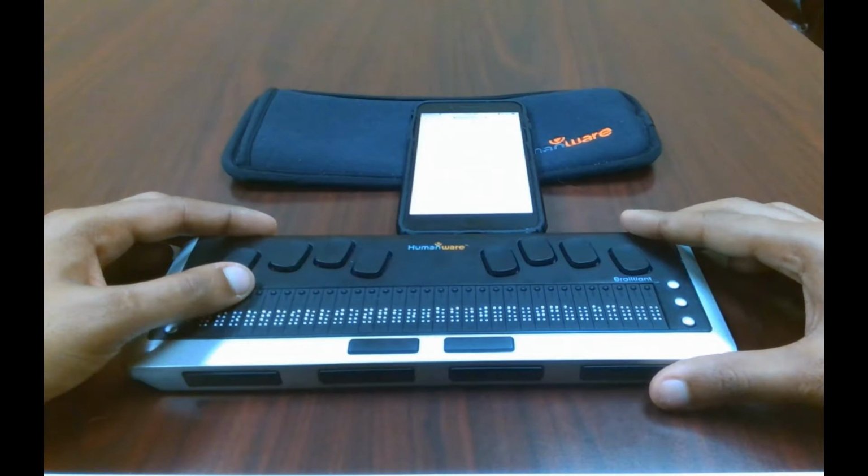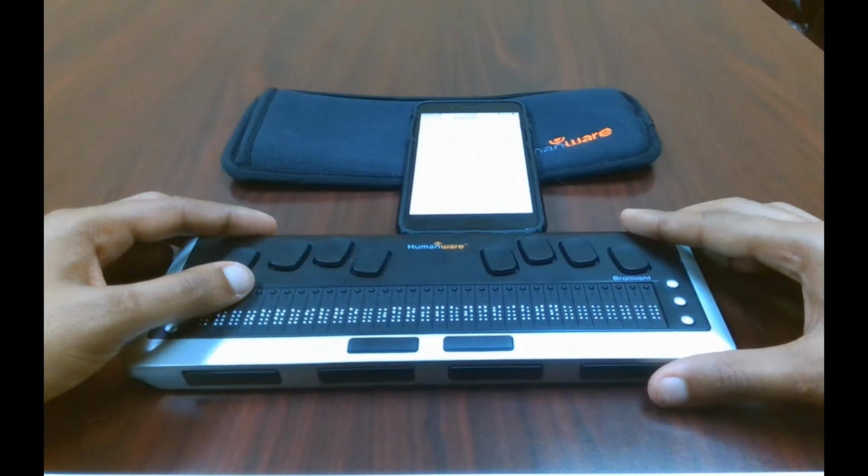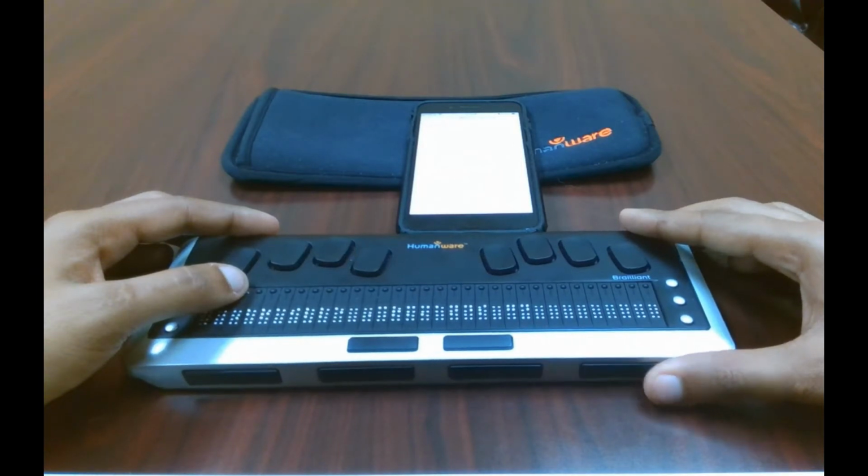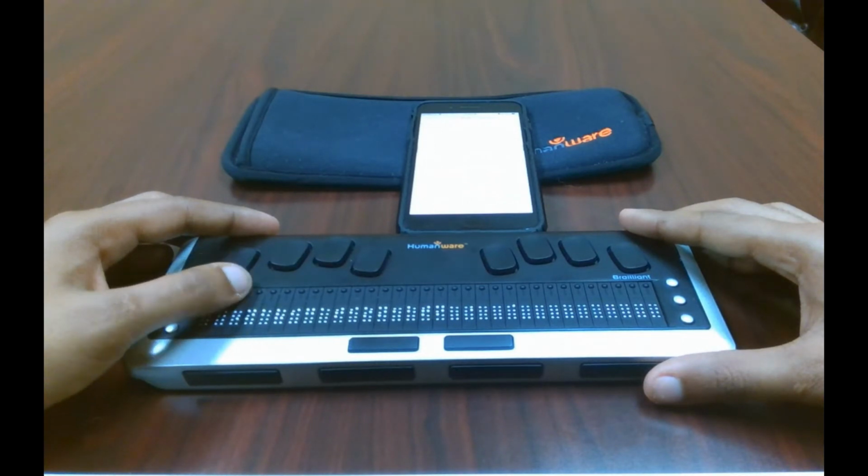Brailliant BI 3271. Heading. Braille Commands. Button. So if you go into this more info area, it's the very first thing that you can interact with, says Braille Commands. So we can click here. Braille Commands: Braille, Device, Interaction, Keyboard, Navigation buttons. So let's go ahead and go to navigation, see what kind of commands we can find in there.